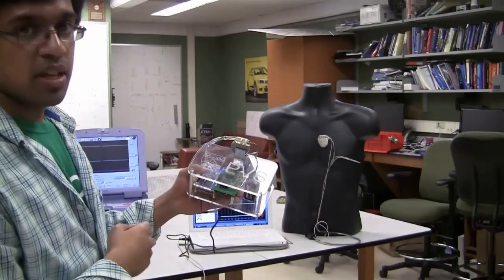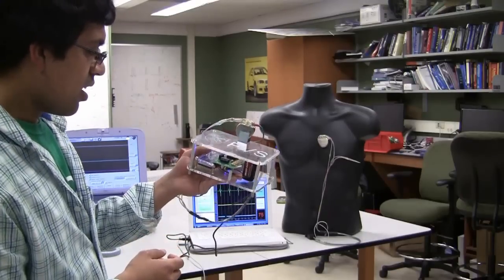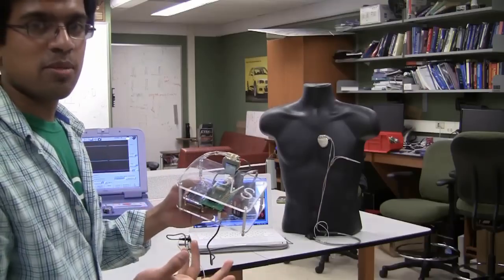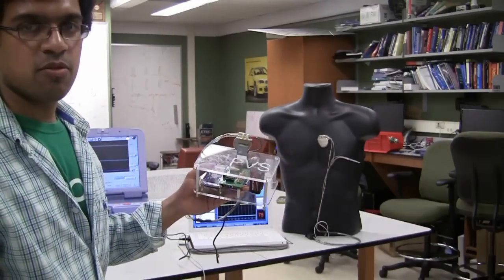We can see how the heart affects the pacemaker, and we can also see how the pacemaker affects the heart in turn. This is a closed-loop system that is unlike simpler testing solutions, where we just give inputs into the pacemaker to see what happens. And this is what differentiates our testing system from older and simpler ones.